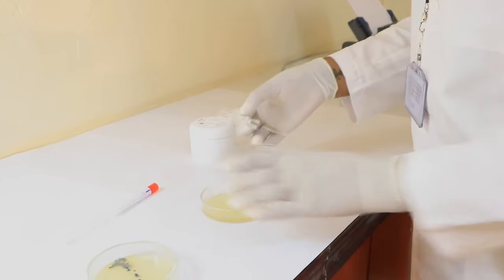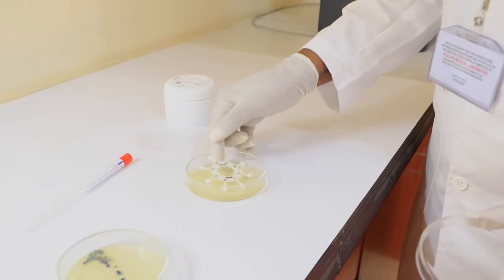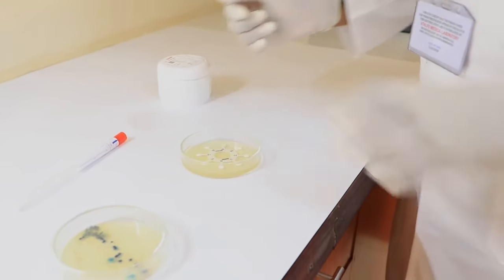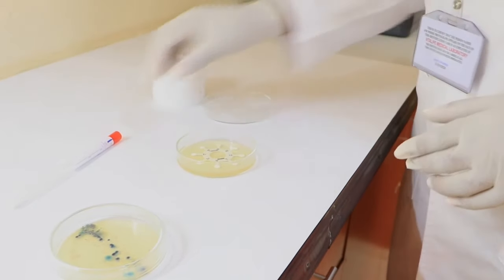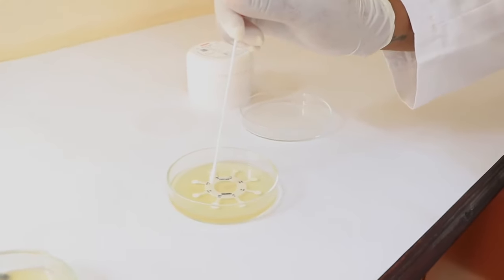Take your antibiotic discs and place them in the center of the inoculated Mueller Hinton Agar. You may use a sterile swab to gently tap the disc to stick it on the agar.